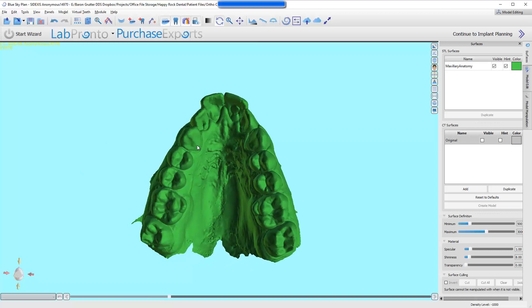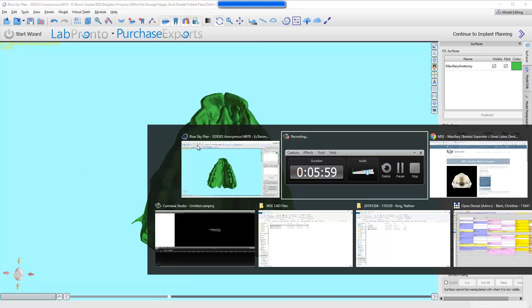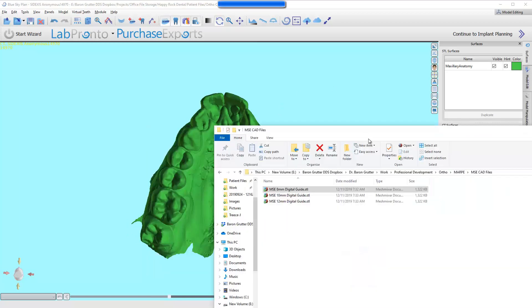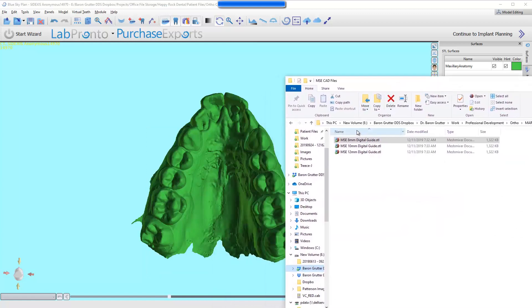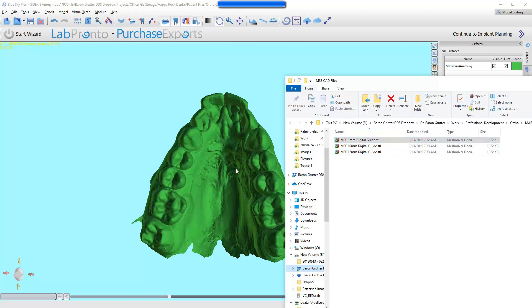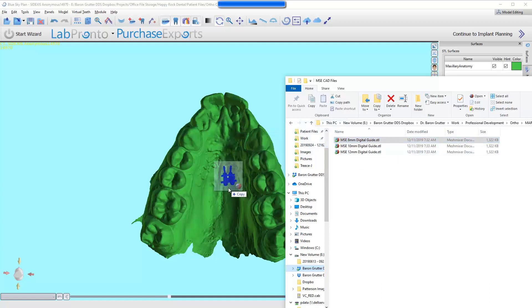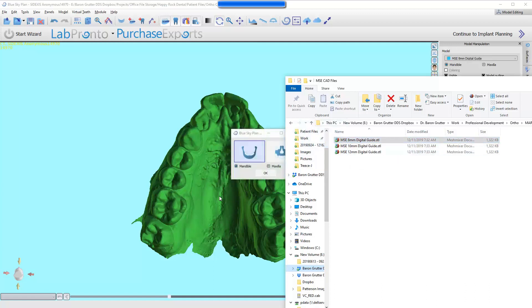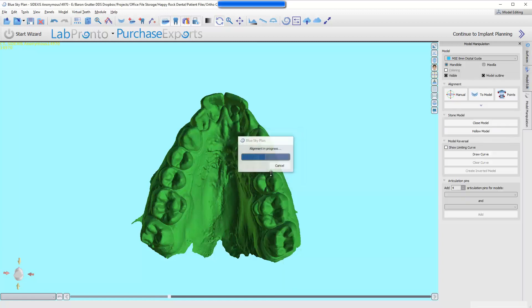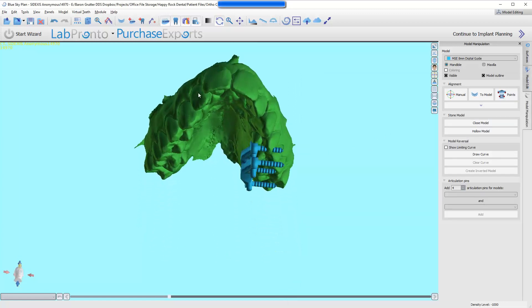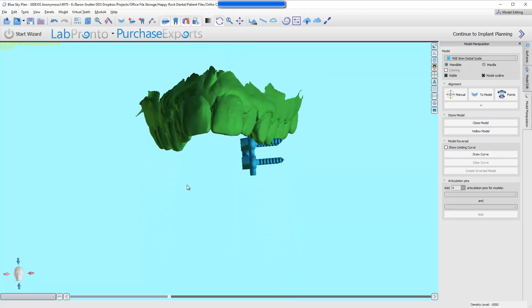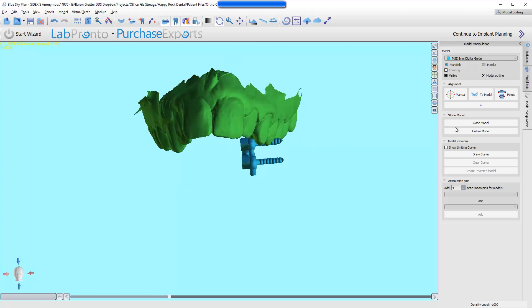Now what I'm going to do is I have a separate folder that was provided by Igor at Great Lakes Ortho. He uses these for himself for planning. I'm going to use them in a 3D, more of a surgical setting. This is so constricted, I'm going to be very surprised if I could fit anything larger than an 8mm MSE in there. So I'm just going to grab this, drag and drop it. It's going to want to automatically align it possibly, and we're just going to skip that. So here is the appliance.